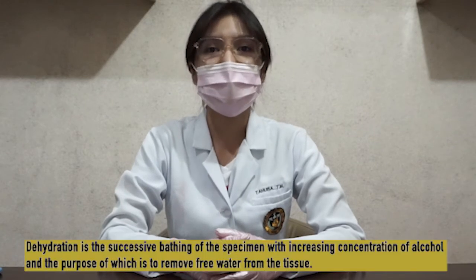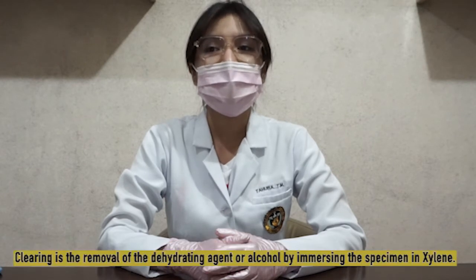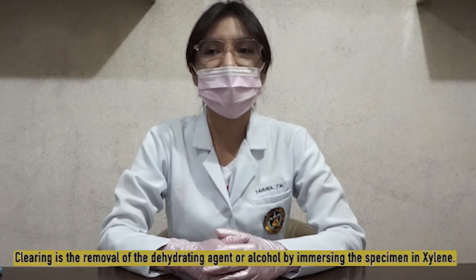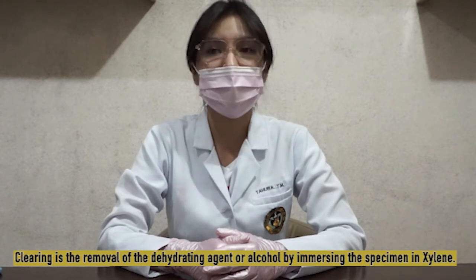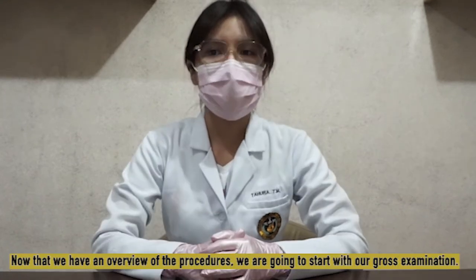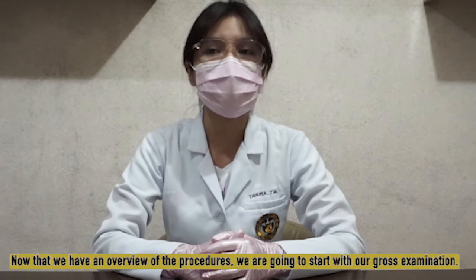Next, dehydration is the gradual soaking of the specimen in increasing concentrations of alcohol, the purpose of which is to remove free water from the tissue. Next, clearing is the removal of the dehydrating agent or alcohol by immersing the specimen in xylene or our clearing agent. Now that we have an overview of the procedures, we are going to start with our gross examination.